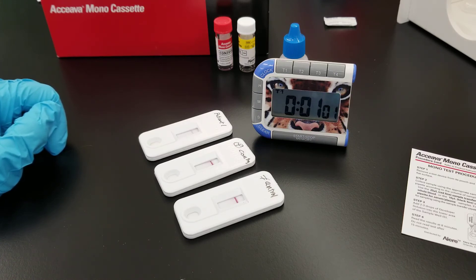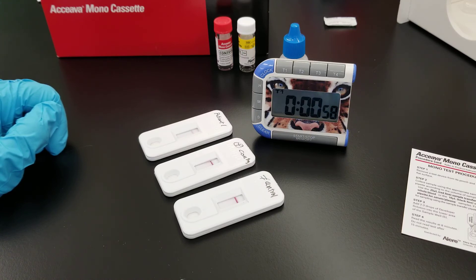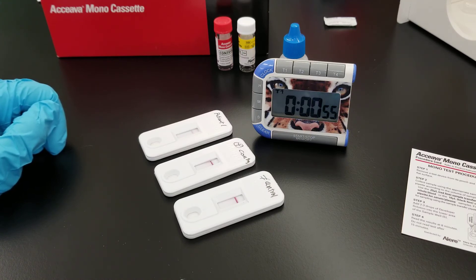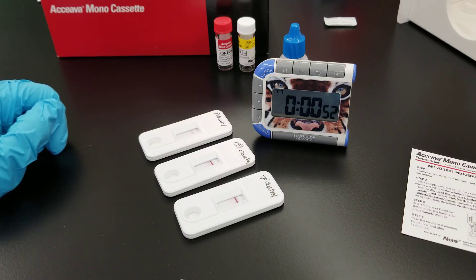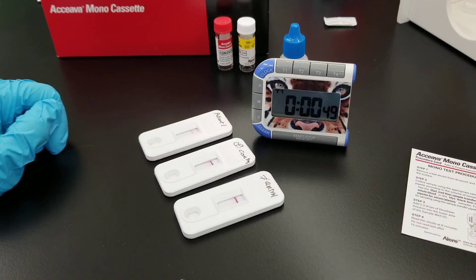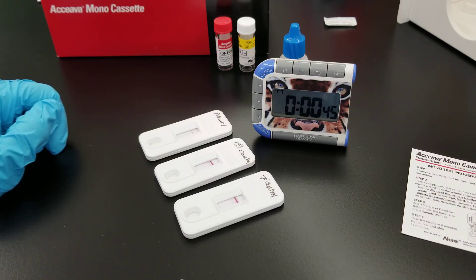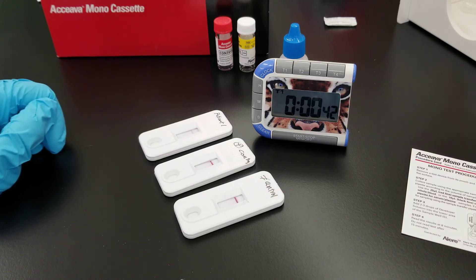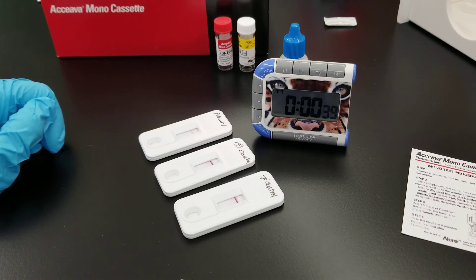Thank you so much for watching. Please make sure to note that if this is positive, you can do the serology test — the anti-EBV or anti-Epstein-Barr virus serology testing — and that way you can detect a true positive or negative.